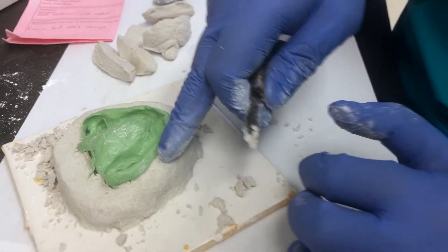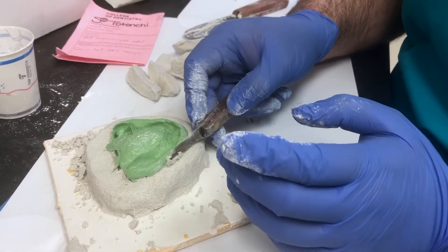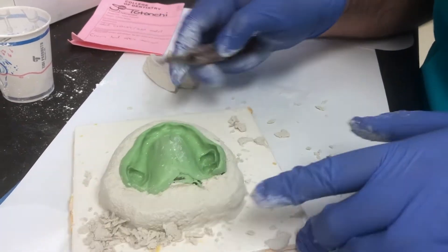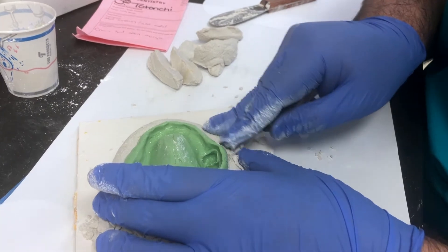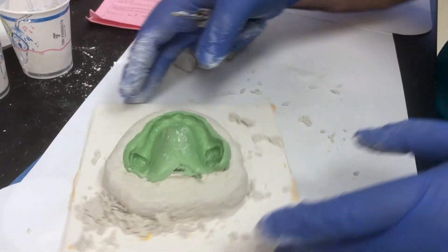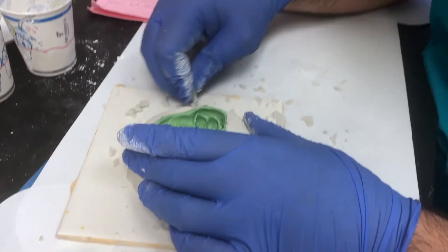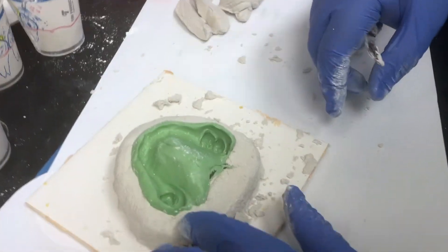Ideally you want about three millimeters of space here showing and at least three millimeters of land area going outside. It's okay if you have a little more. After this, I'm just going to trim it a little bit in the trimmer. Right here it's probably a little too high, but it's not the end of the world — it just means your vestibule is going to be a little deeper and you'll just have to trim the MicroStone off a little bit.